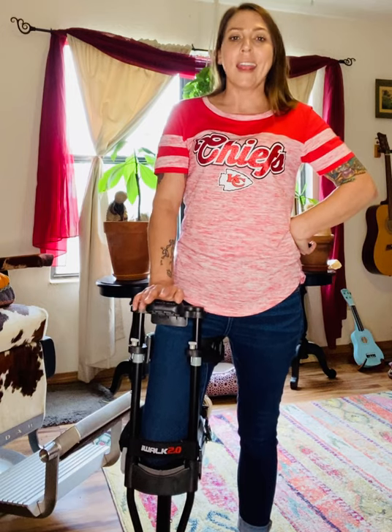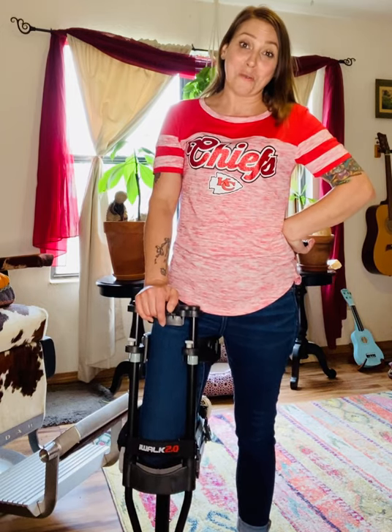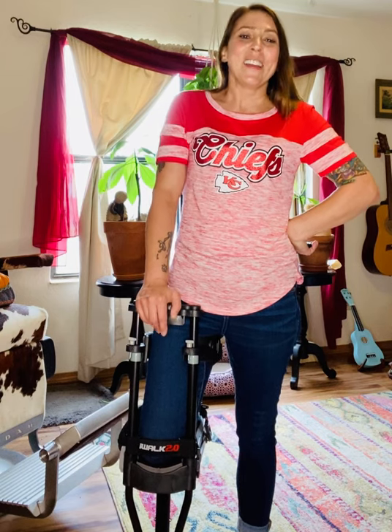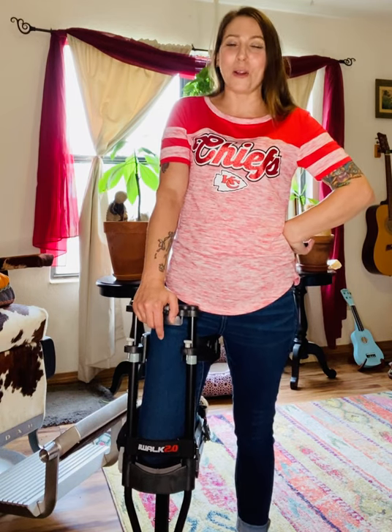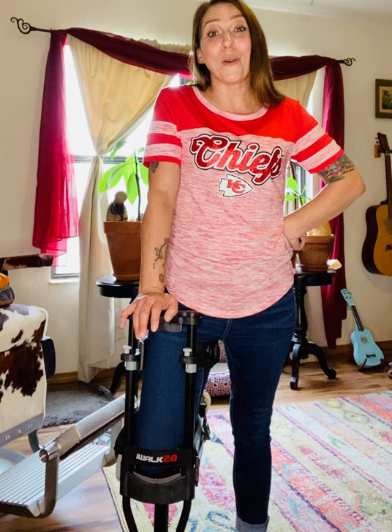It's easy to put together, it's easy to use — it's a really great solution if you don't want to have to use a knee scooter. Give me a call if you'd like to have a virtual demo at 417-655-6571 or email me at awest at www.empowerabilities.org.